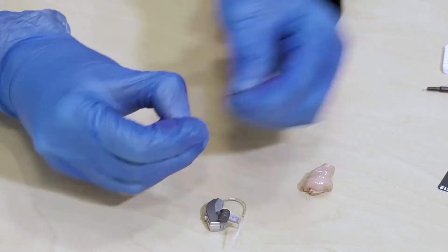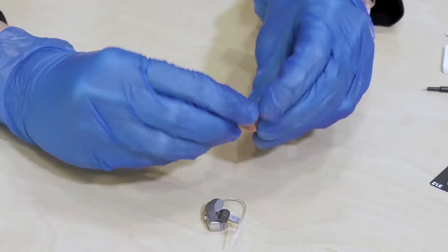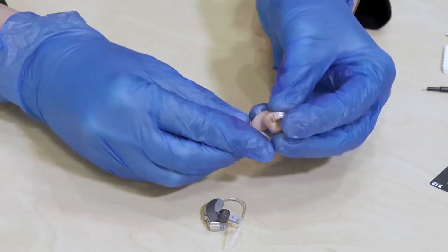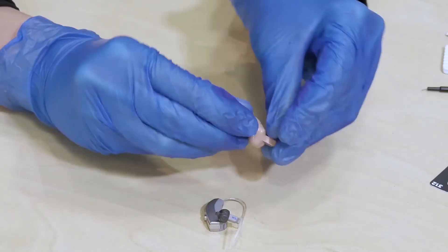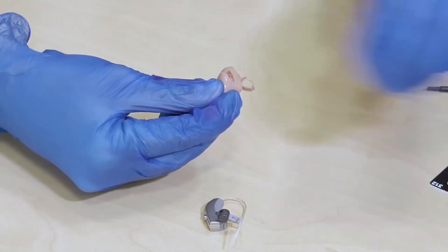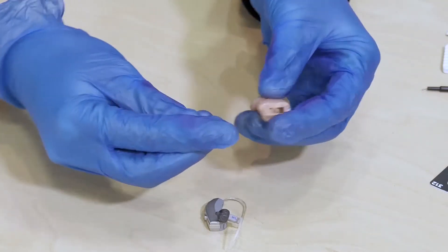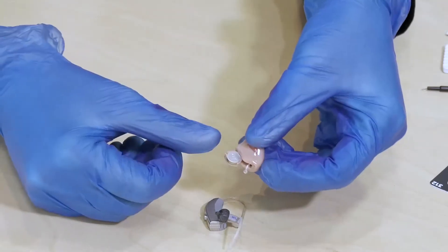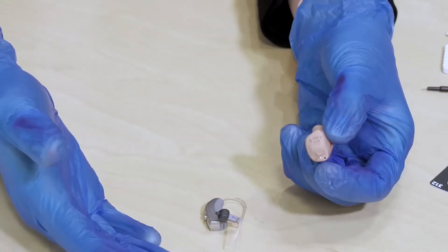We'll pop one in the custom hearing aid as well. Take out the old one, a little bit hard in gloves, but take out the old one, pop in the new one and just check if they're working or not.